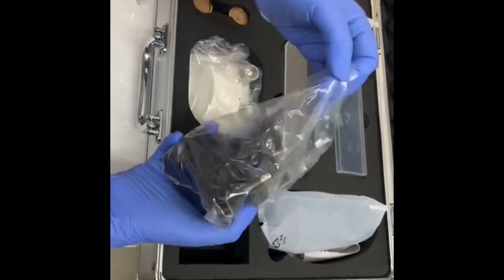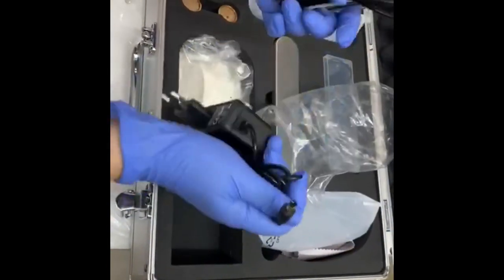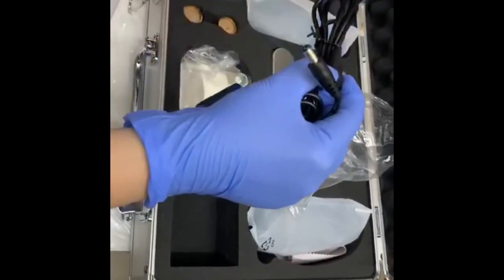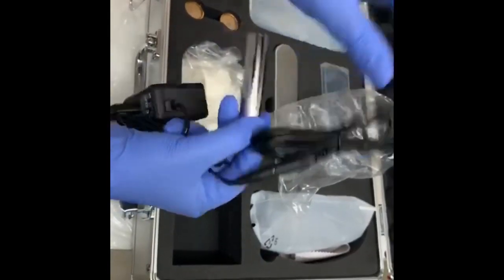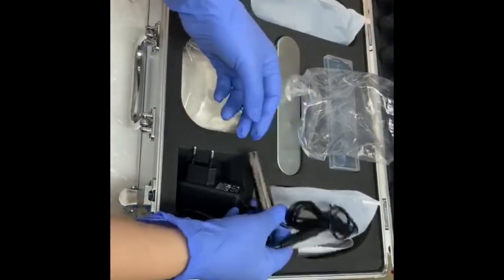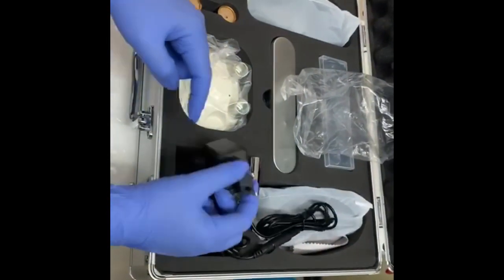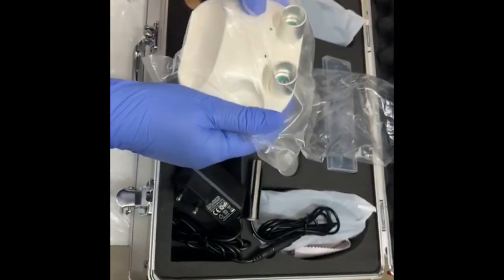So this is your charger, your power supply. Attach like this. And this will directly go into your laser pen. If your batteries are not working, you can even plug this and use it like that. This is your charging station.